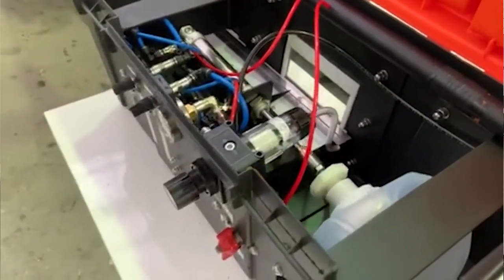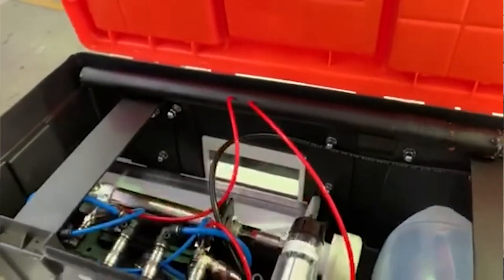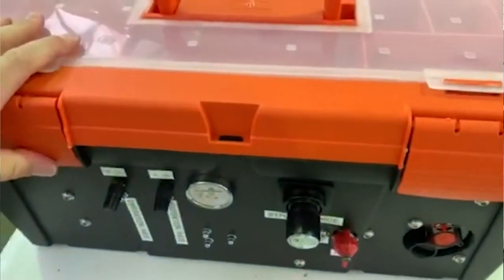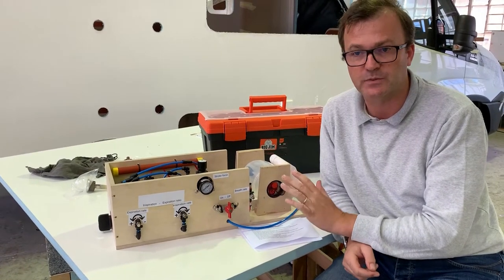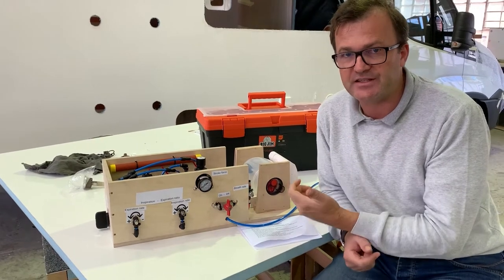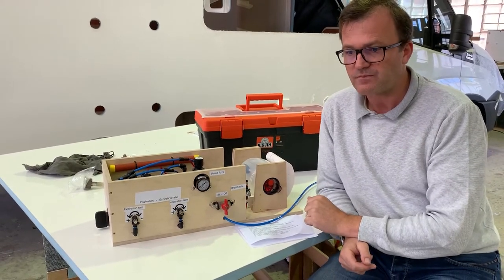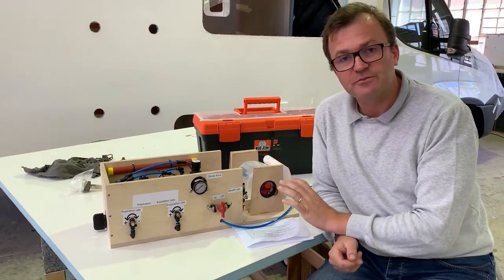There's no electronics, no electrics, nothing. It's an entire device operated by air only. If you have compressed air, which hospitals have and is very easy to come by, then this machine will operate.